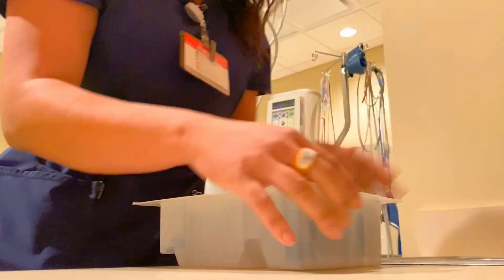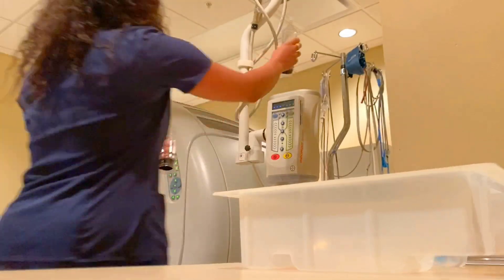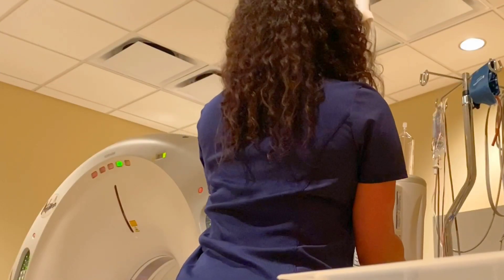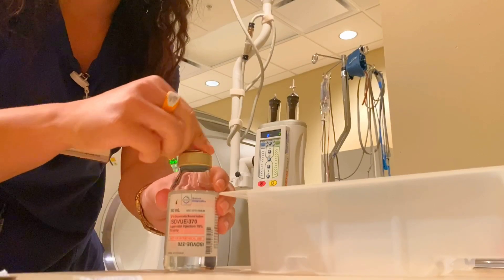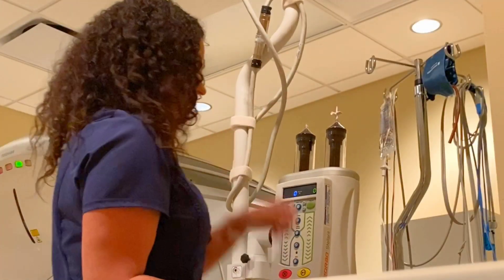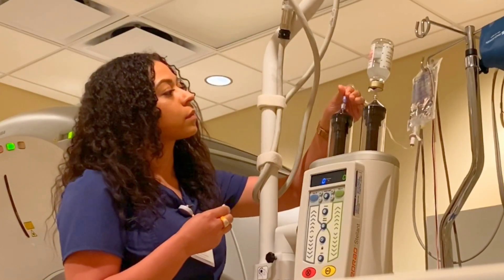Now you'll watch me set up the IV contrast and get it ready for a patient. We have these pre-made kits that we use to load the power injector. The power injector allows us to inject the contrast without us being in the room exposing ourselves to radiation. Since we use the console to set up exactly how much contrast and saline we want to administer, the power injector is really smart and will actually draw up the contrast and saline to that exact volume.